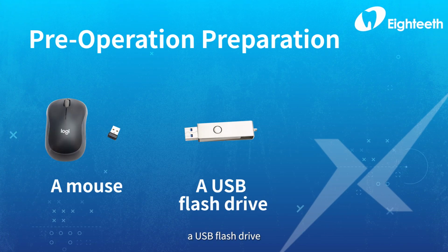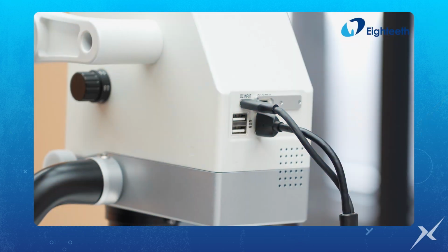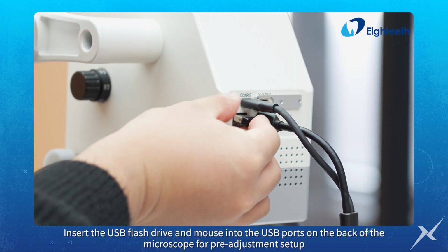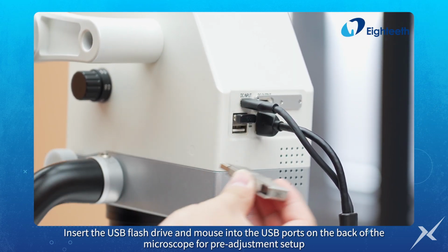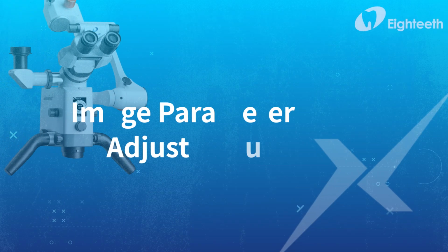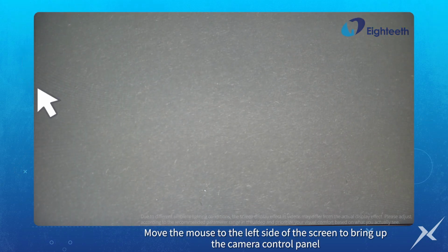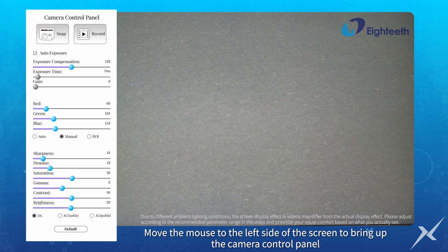Prepare a mouse, a USB flash drive, and a blank white A4 paper. Insert the USB flash drive and mouse into the USB ports on the back of the microscope for pre-adjustment setup. Move the mouse to the left side of the screen to bring up the camera control panel.